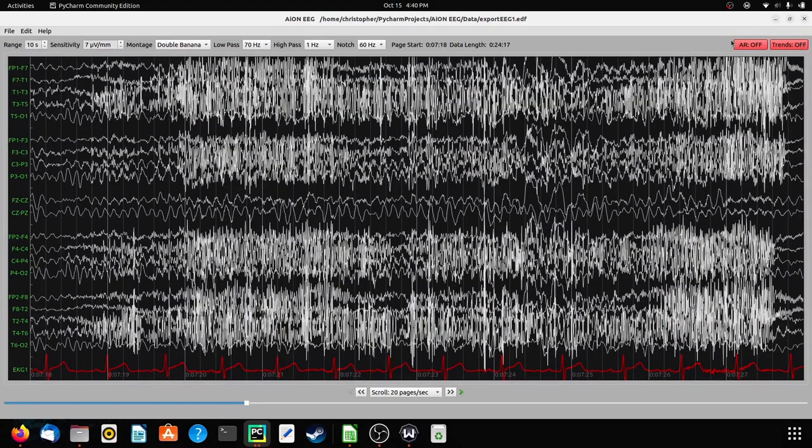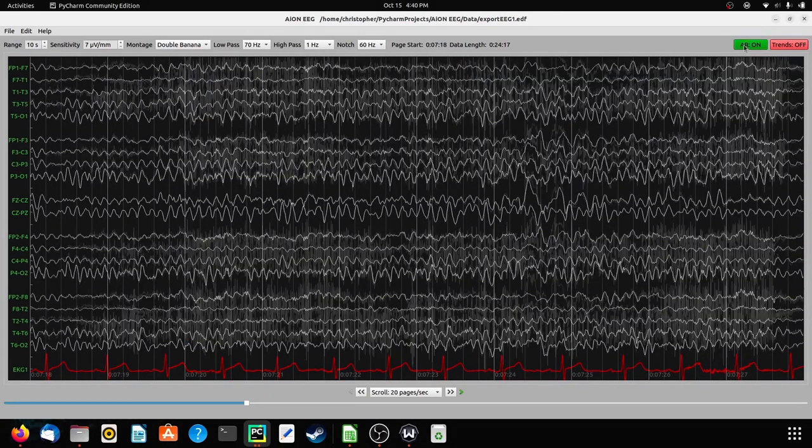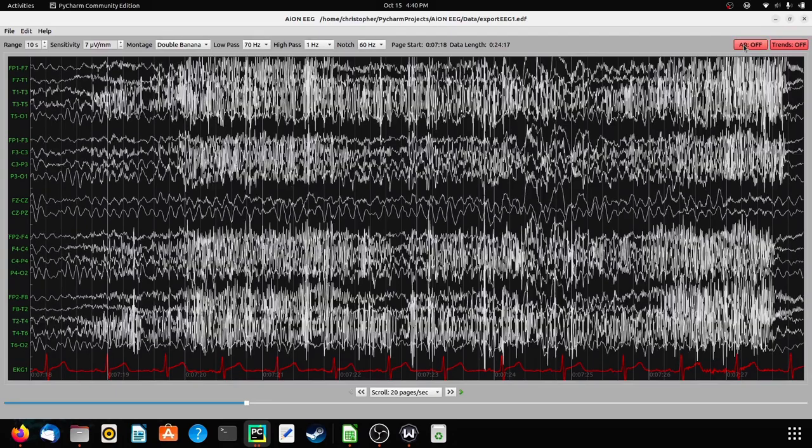Back in the day, to get rid of muscle activity on the EEG record, you'd have to use something called a high-frequency filter. That was good back in the early 2000s, but now that we're in 2022, we have better ideas of how to reduce noise on the EEG than these ancient filters that were around forever. These are the state-of-the-art methods to getting rid of noise on the EEG.